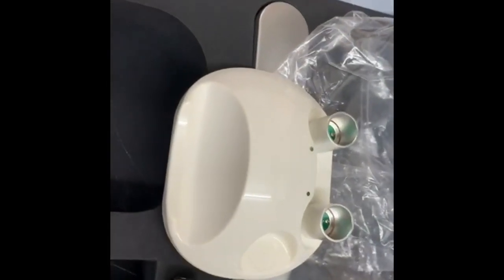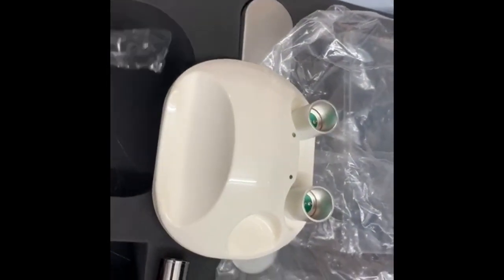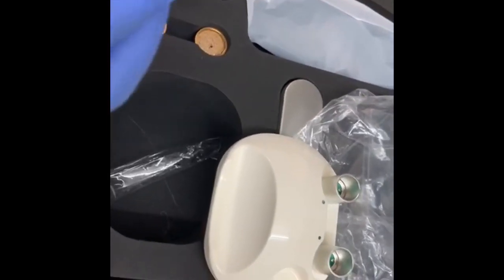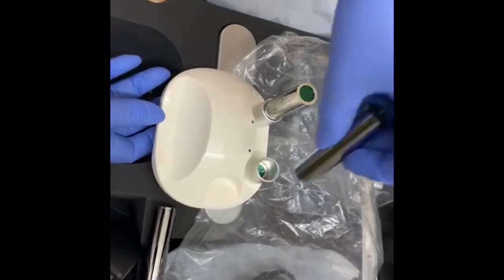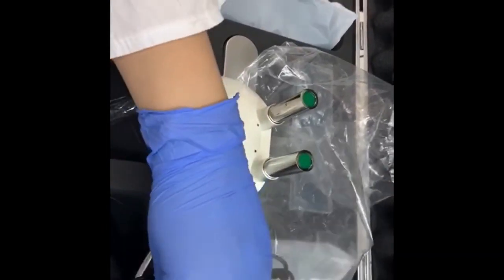We have two rechargeable batteries which you need to keep like this. And let's see is it working or not.